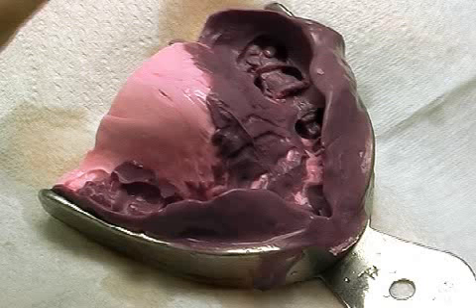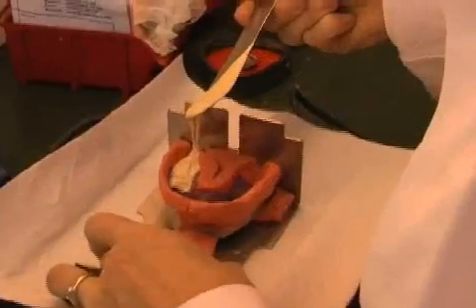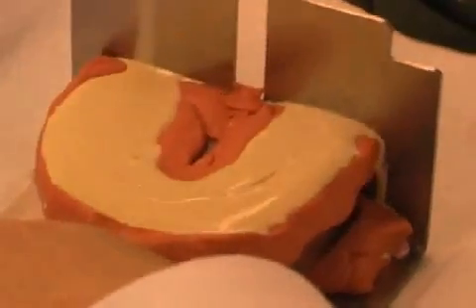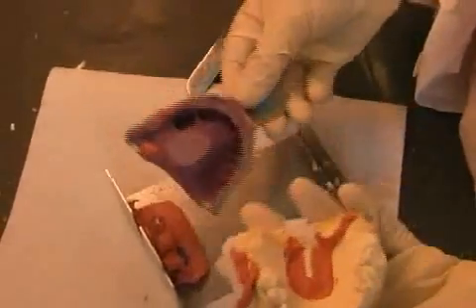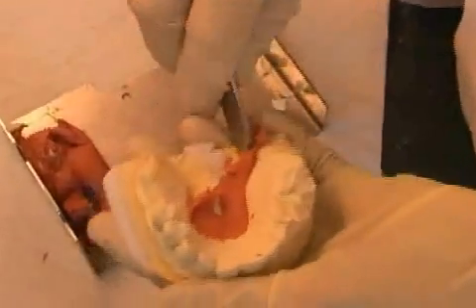In the field of dentistry, impression materials are used to create replicas of your teeth. This replica is later filled with a plaster material in order to provide the technician with an exact model of your teeth. Then, based on these plaster casts, the technician is able to produce the required dentures.